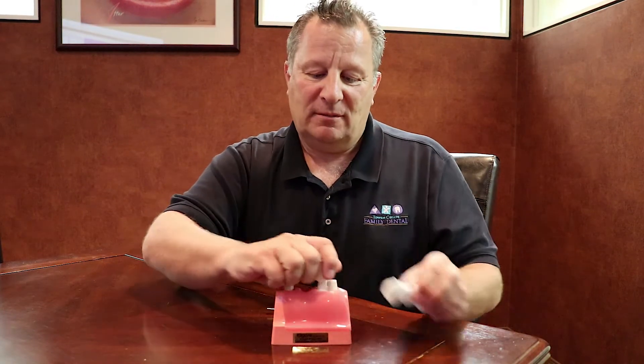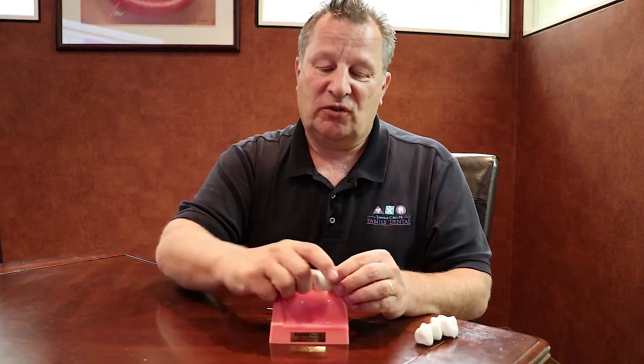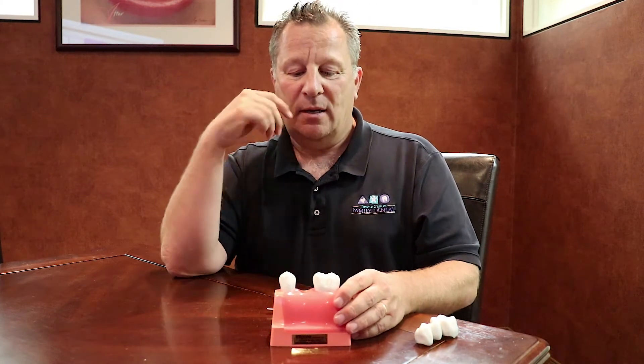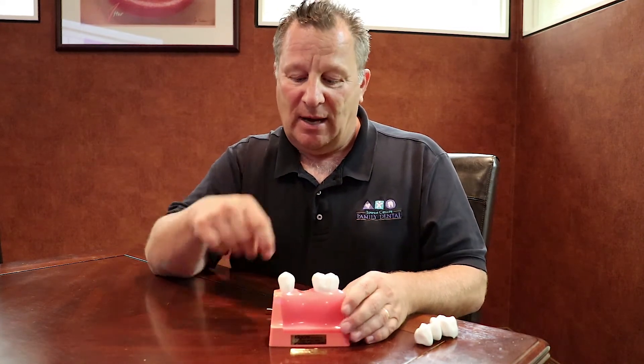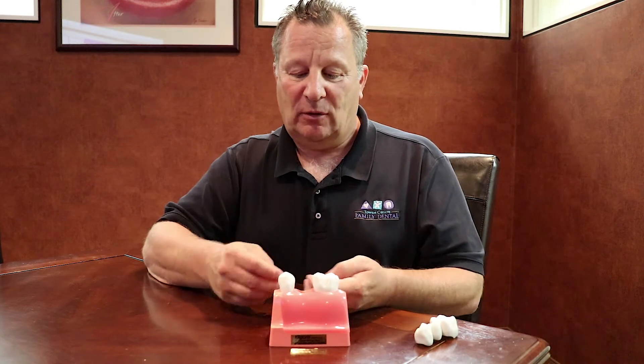The other option, which is becoming more and more popular — and we'll discuss why in a minute — is to use a dental implant. A dental implant is a cylinder of titanium that's put into the gum line so that a tooth can be added to it.